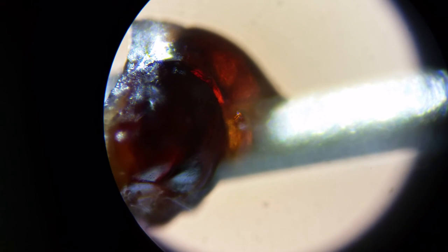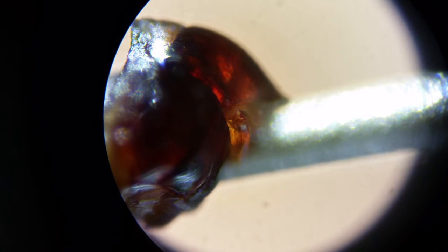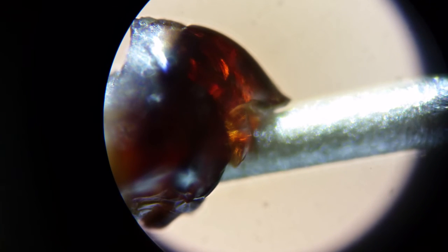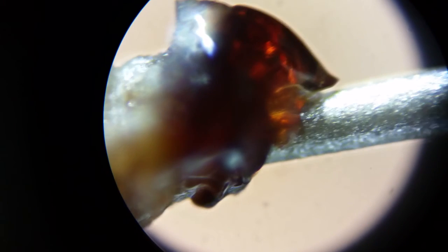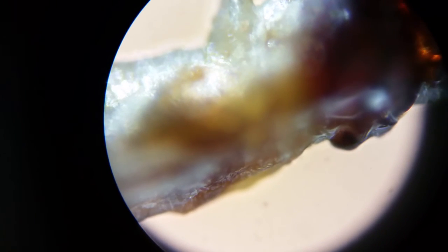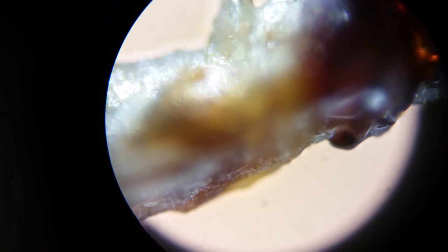And we'll move a little bit. That's basically just amounts to a blood clot that had formed at the junction between inside body and outside body, which is good, I guess. That's what the body's supposed to do. Further in we get just cell buildup.